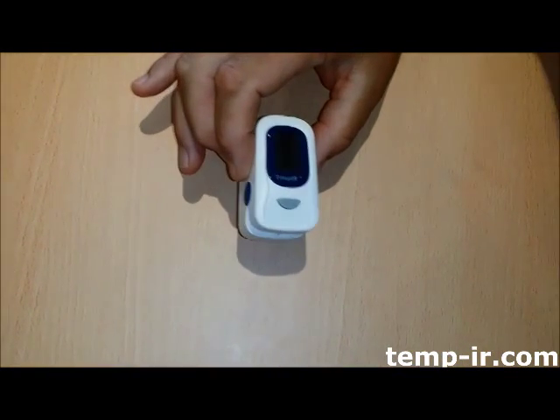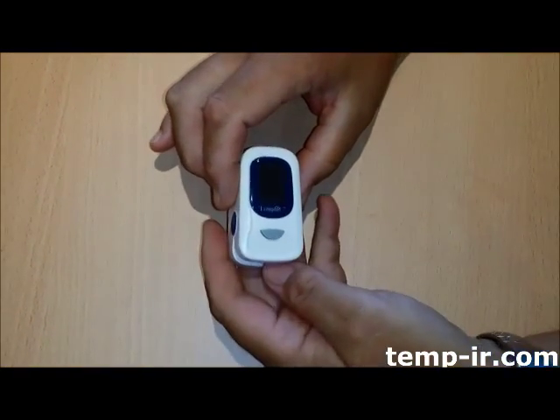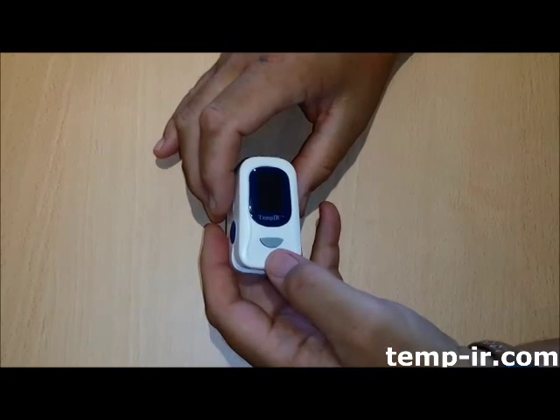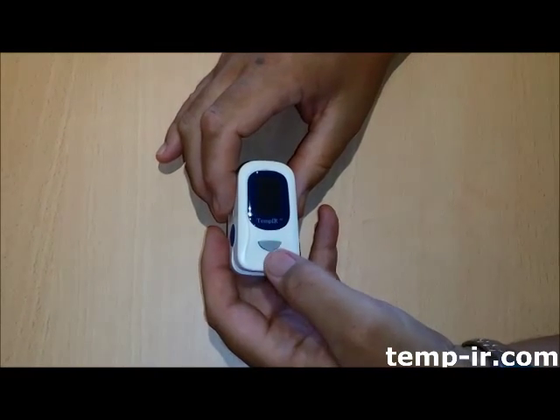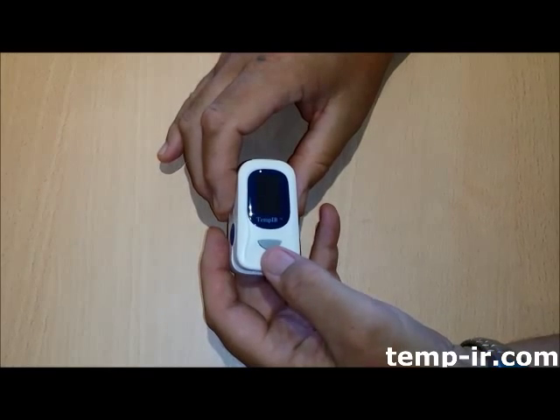Hi, please follow these steps to access the temp IR oximeter menu screen. Step 1: Turn the pulse oximeter on by pressing the button once.